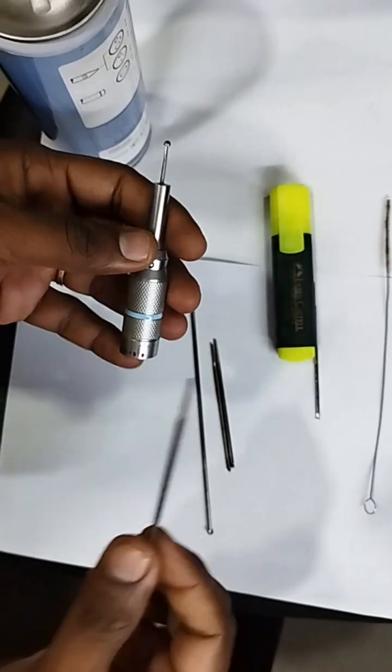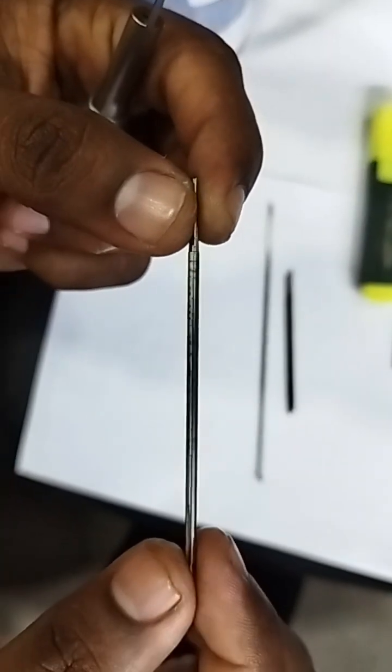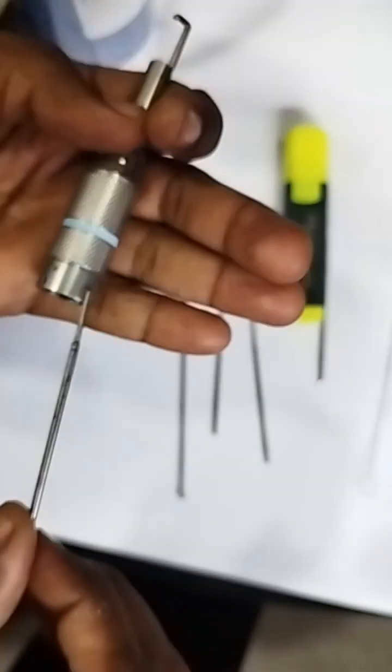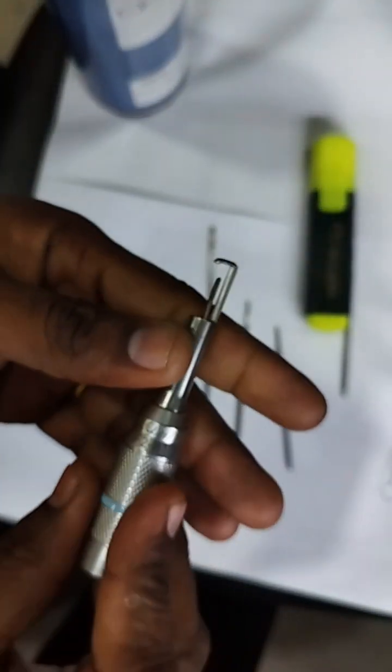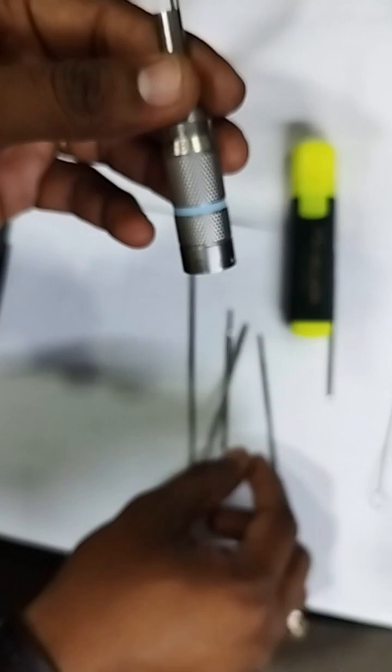This is very important. Now it is going freely — you can see it has some small rust-like things but it is going and working good. These tools are the same; you can see this one is going inside and working fine. These kinds of tools you can use.